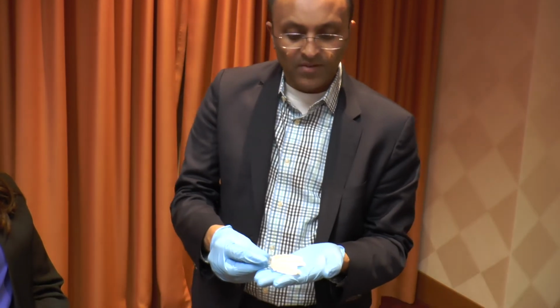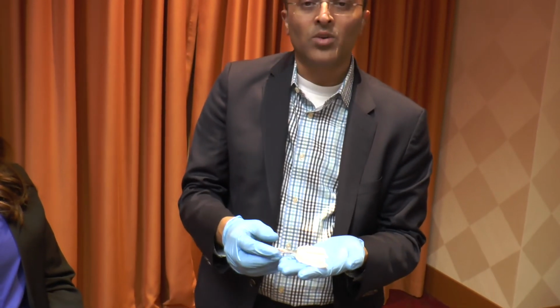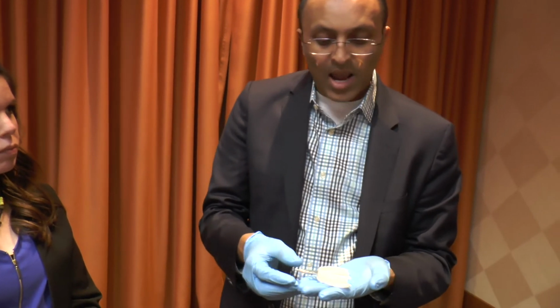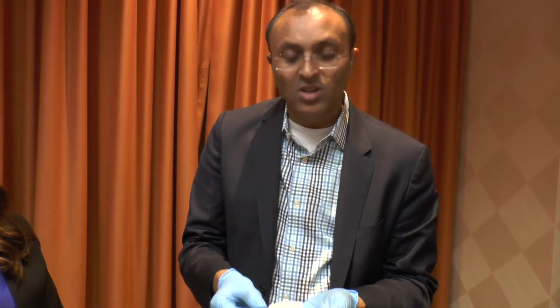To take care of this device, since warm water, hot water was utilized to mold it, the patient's instructions are basically to brush it with a plain old brush. Since this device will be in the mouth for 8 hours or so, it's going to have plaque that will form just as plaque will form on teeth. So brushing the device on a daily basis is important.